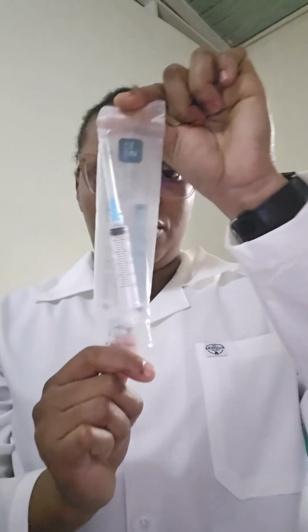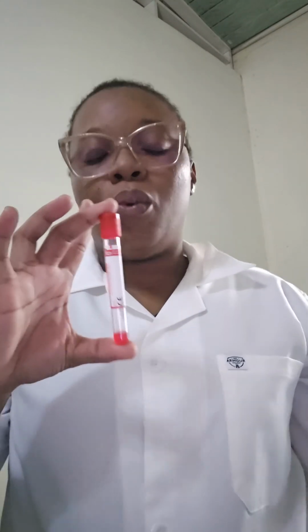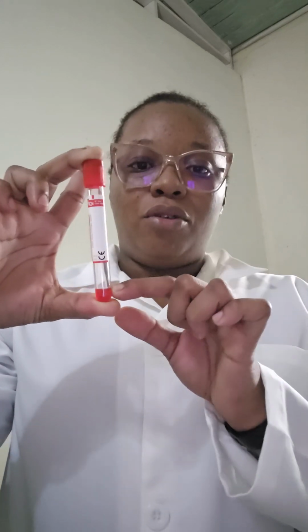There are three types of needles that a phlebotomist may use: a multi-sample needle, a hypodermic needle, and a winged infusion needle, also called a butterfly needle. Here I have a syringe, which is also a hypodermic needle. Here I have a red tube. These are available in different sizes, colors, and volumes, and they have different purposes. However, this red top tube has a clot activator. When the specimen is placed into this tube, the clot activator clots the blood.